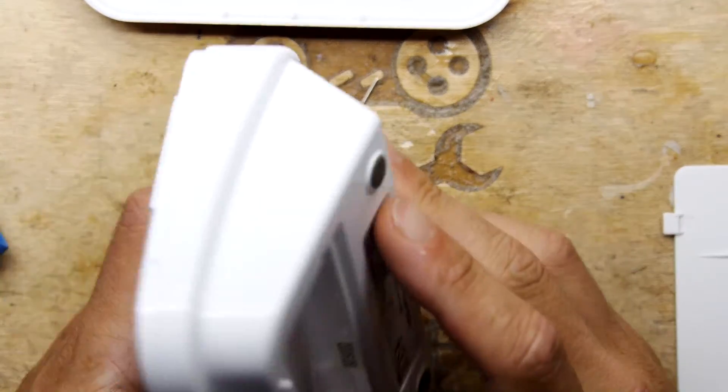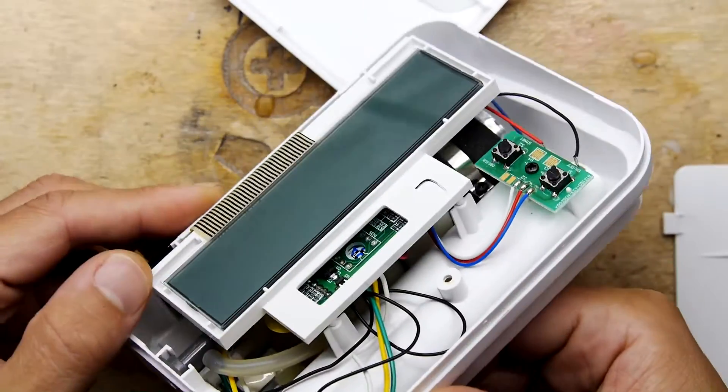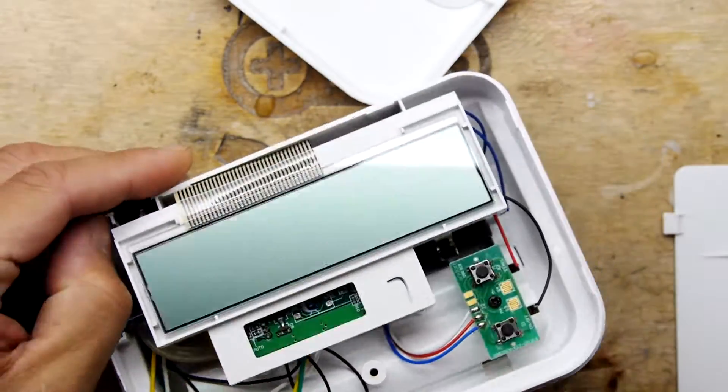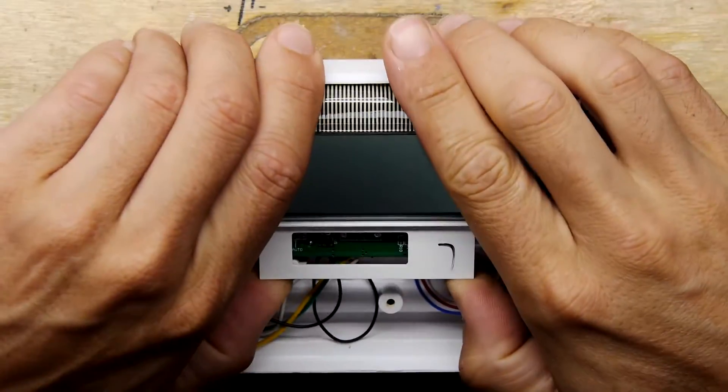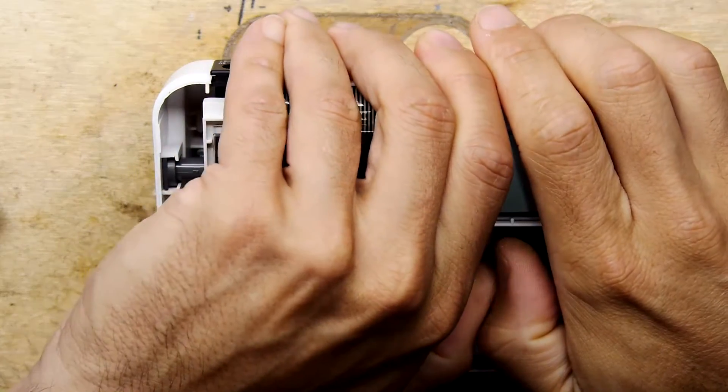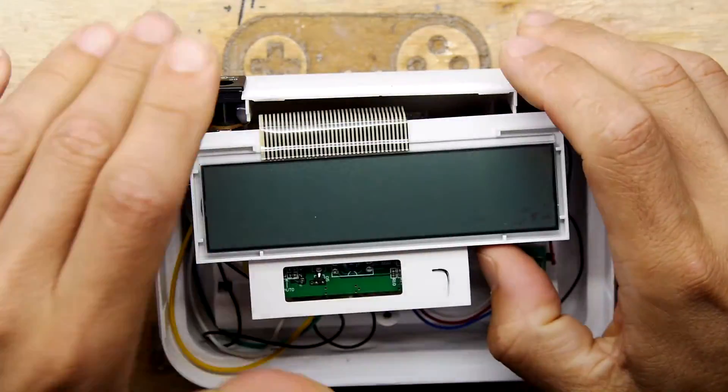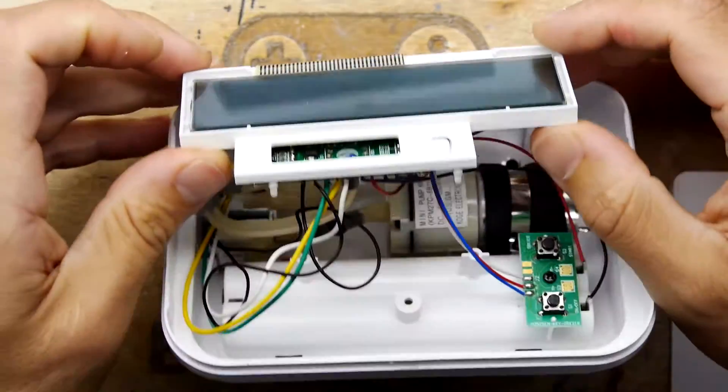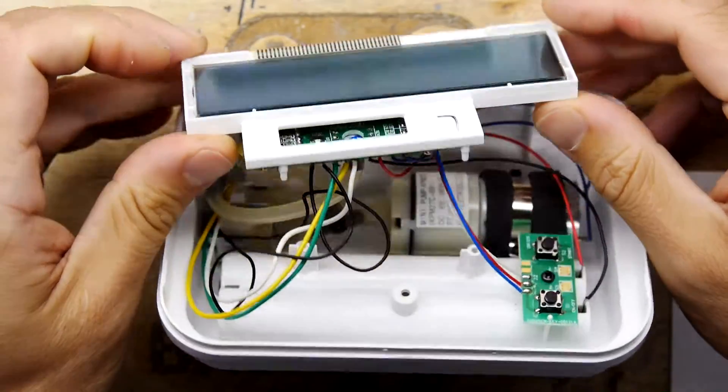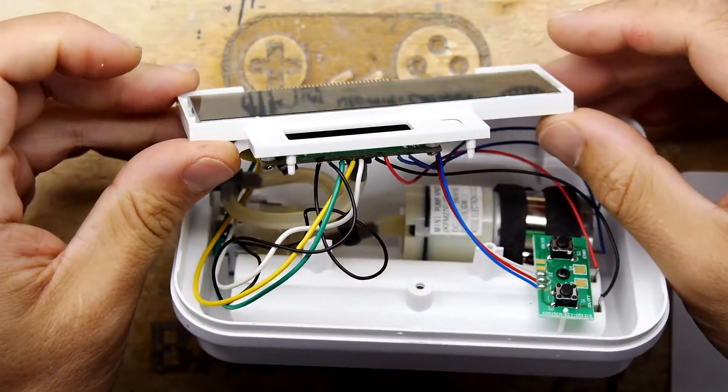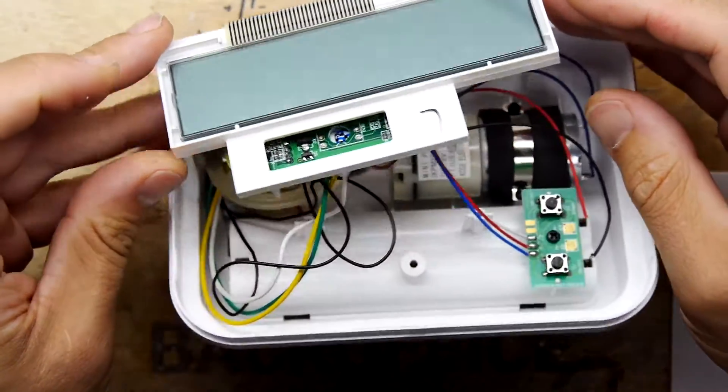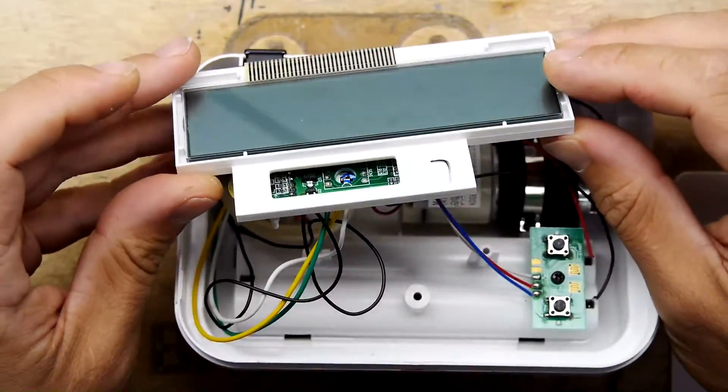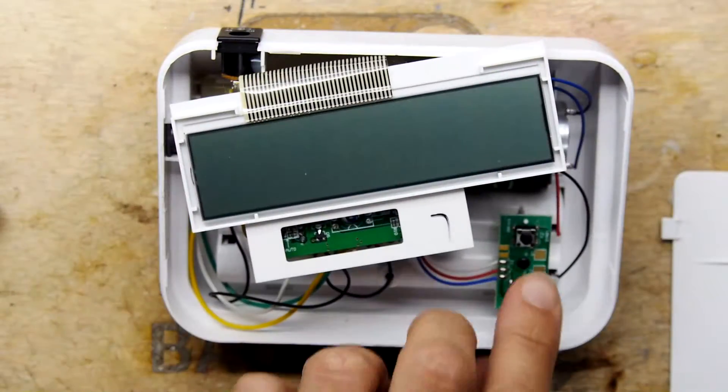So how do we get in that little bit further? So we need to pop this off. I can see the little piezo element and that'll be the buzzer. Okay. Gently, gently. And I'm just determining the best way of getting this done. I think if we undo the button here, that'll give us enough slack.